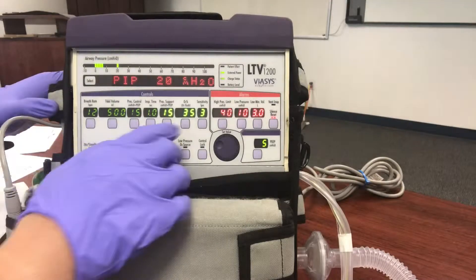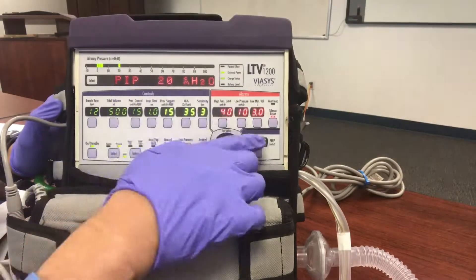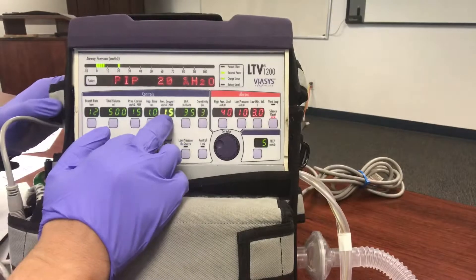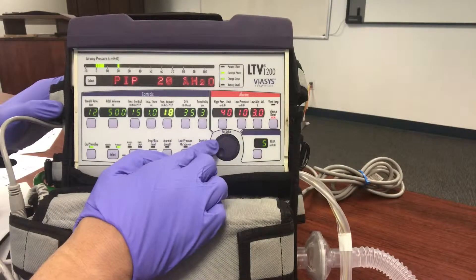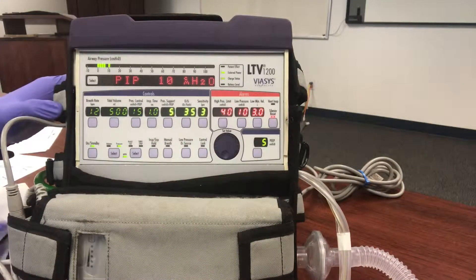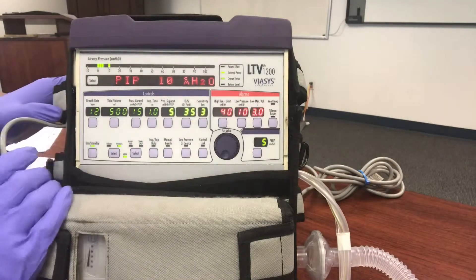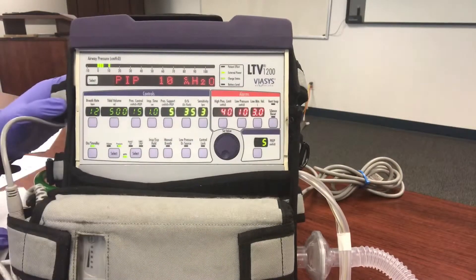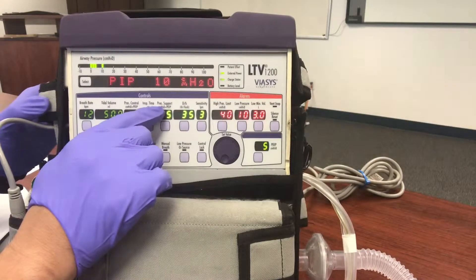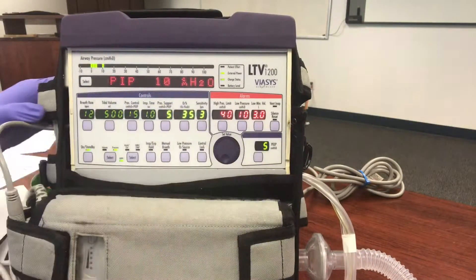So if we want to go to 10 over 5, how do we do that? We have to adjust the pressure support, because IPAP minus EPAP equals pressure support. If we're doing 10 over 5, we take that into consideration and set pressure support to 5 — that will give us 10 over 5. Look at the PIP: the PIP plus the EPAP in centimeters of water — it's additive. So you have to do the math. Our true BiPAP setting is 10 over 5.